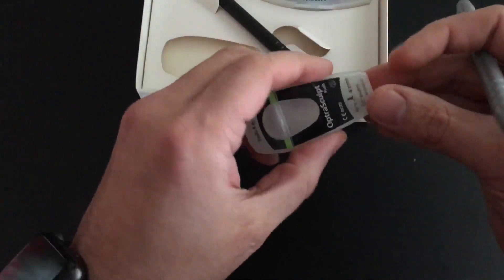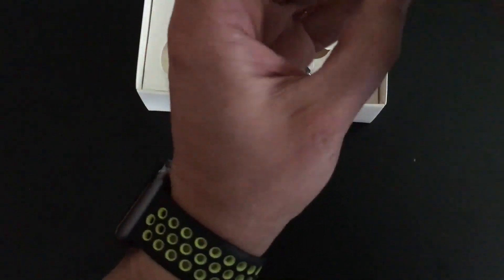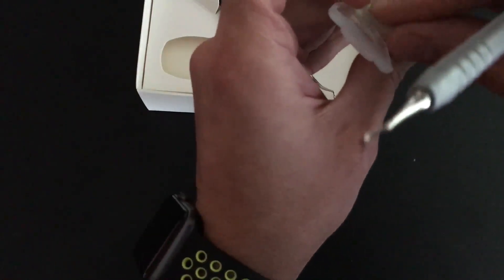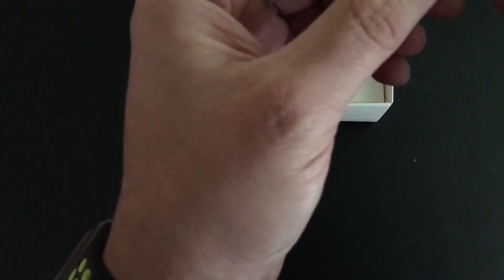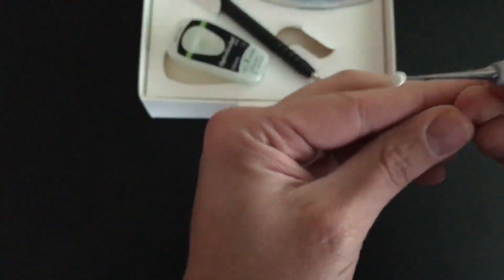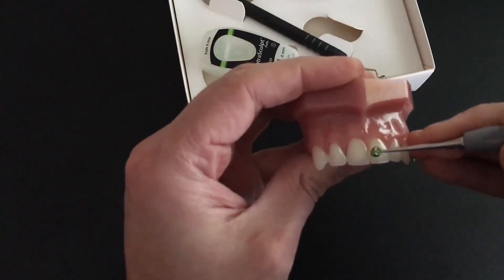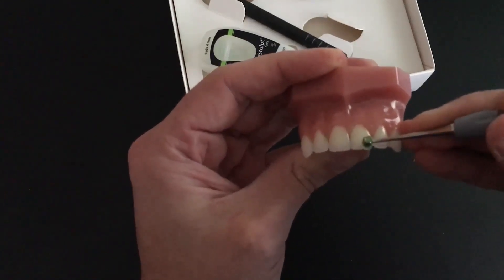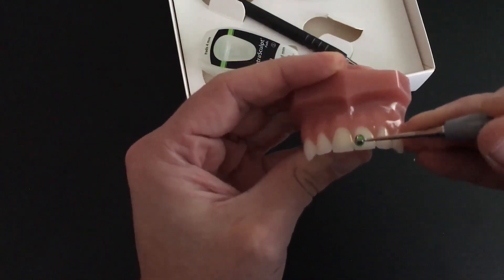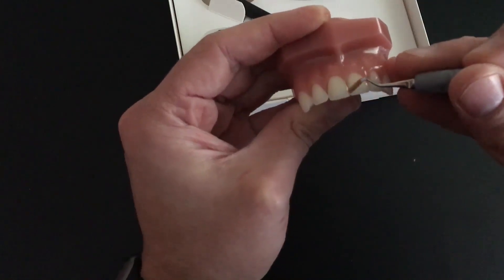What's really great about this instrument is these little pads here, and these little pads really help for anteriors to kind of push the composite around. I'm going to grab one out here and take a look at it. It's a nice pad — really able to push and sculpt composite, thin it out, and work it around a bevel. This is a really nice tool for anteriors, and when you flip it to the other side, you've got the composite instrument where you can do all your stuff.